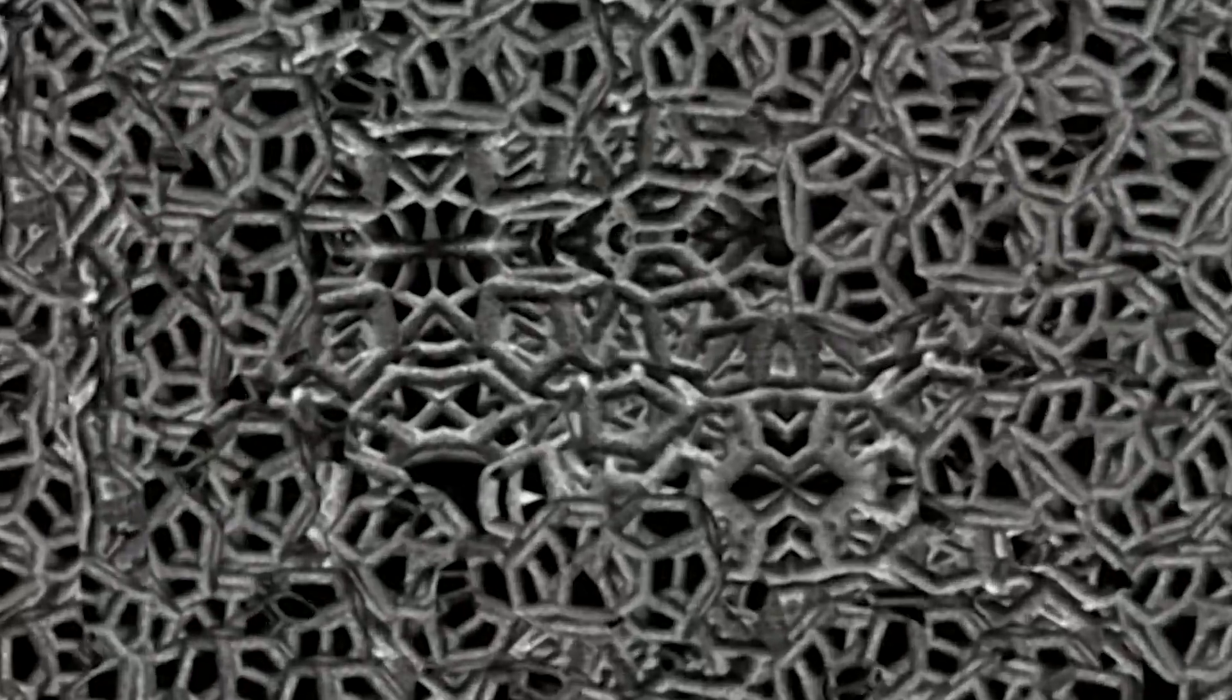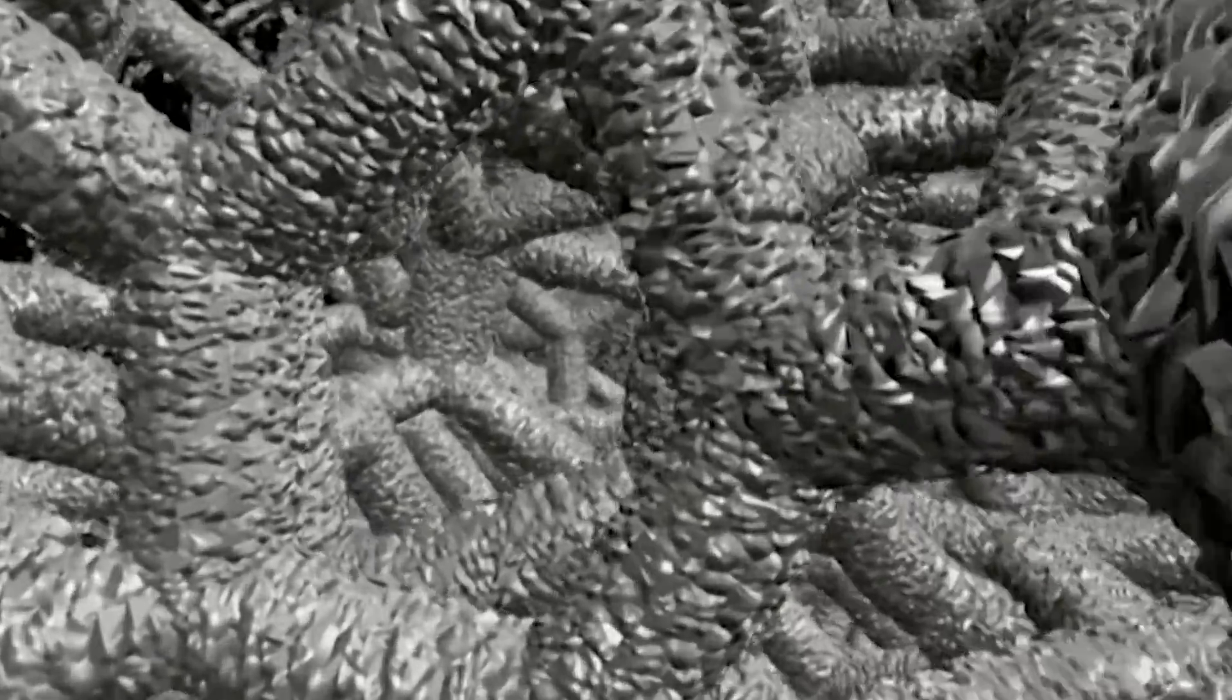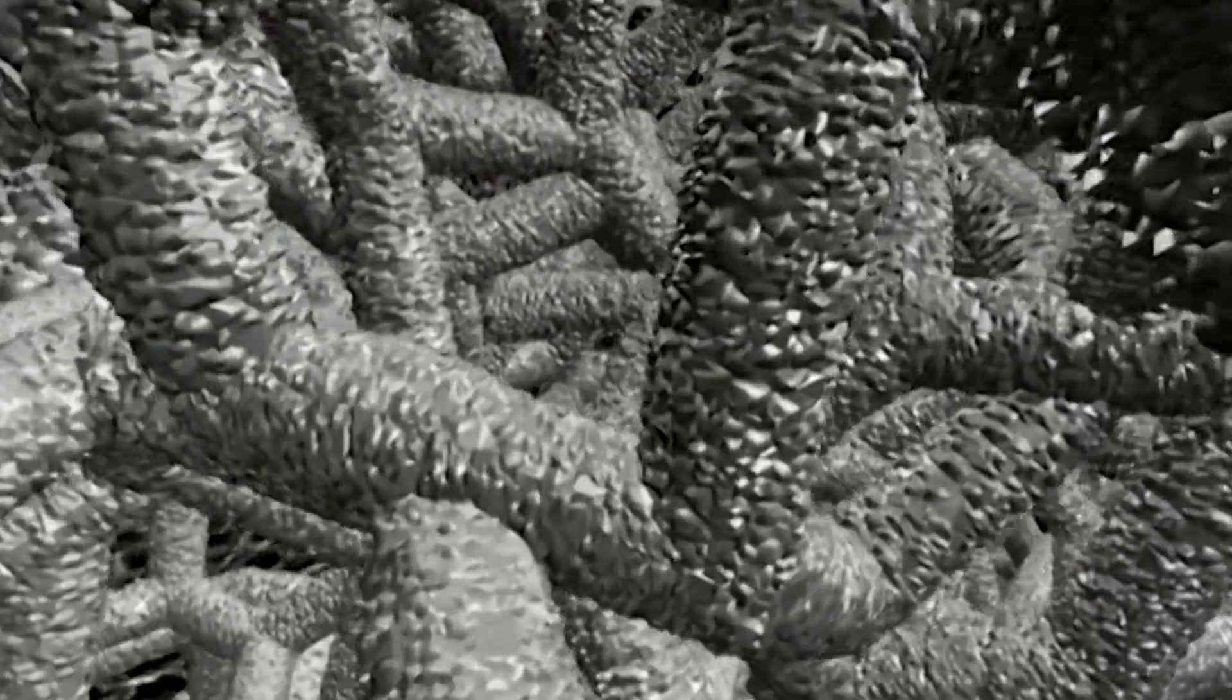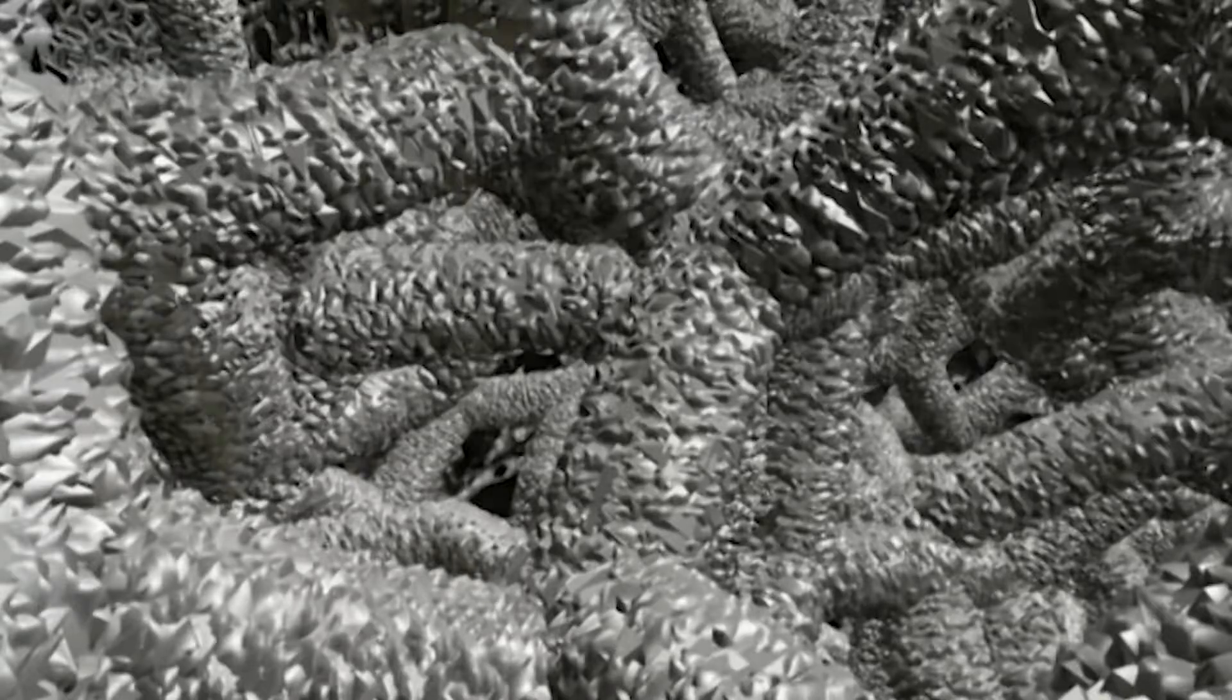A glimpse inside the structure of the material shows that it truly exhibits three-dimensional uniformity, 75 to 80 percent porosity, and a 100 percent continuous open pore structure. Notice the micro-textured surface topography of the individual struts.